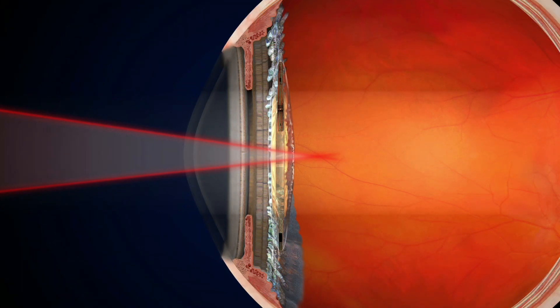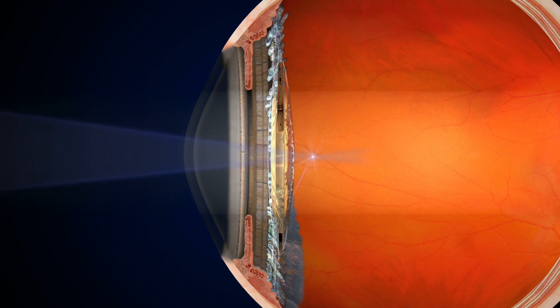In this 3D animation, you can observe the formation of gas bubbles. The initial gas bubbles are highly reflective at the time of plasma formation, so that a large part of the pressure wave is bounced back retrograde towards the lens capsule. This phenomenon is called plasma shield, which leads to photodisruption of the capsule.